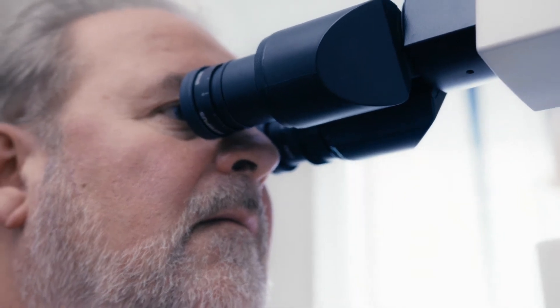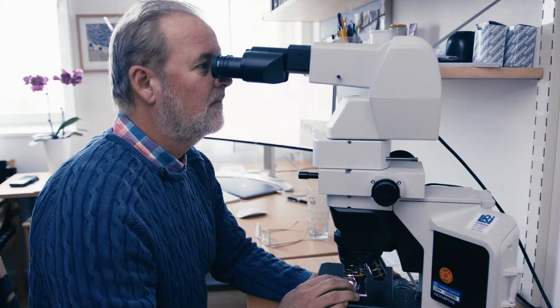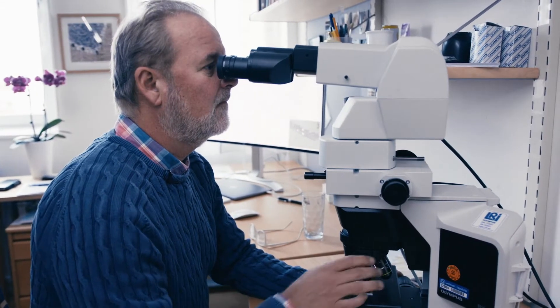I try to understand and evaluate the degree of order and disorder to discern if this is a cancer or if it is some other lesion.